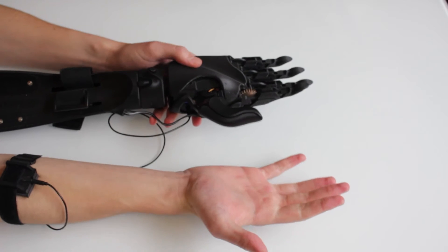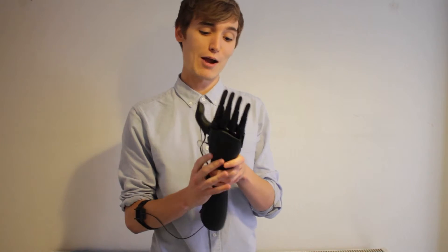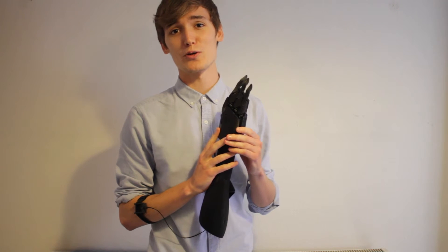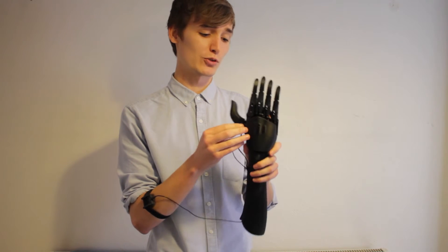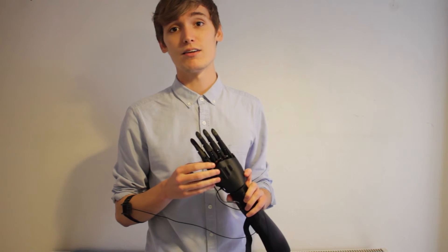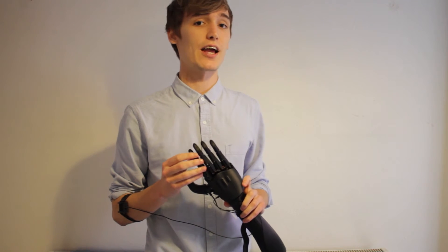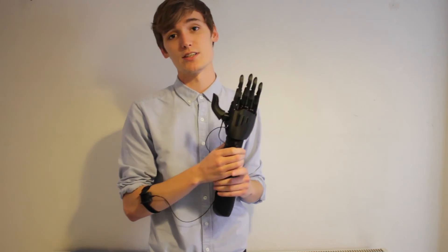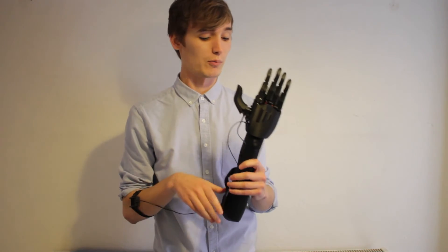That's up to us and the team of now pretty much over 50 engineers and designers from Wevolver who are giving us a hand. The video of Ryan's hand is going over to Neela, who's going to advise him on how he can keep his wrist strong — because one of the things we don't want to do is create a solid structure around his whole arm and then his wrist seizes up and doesn't work.